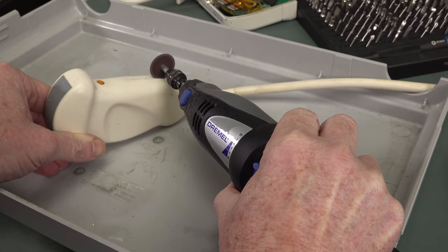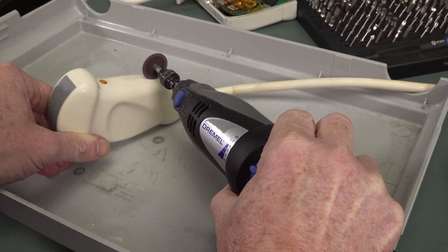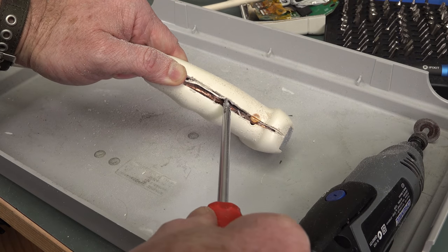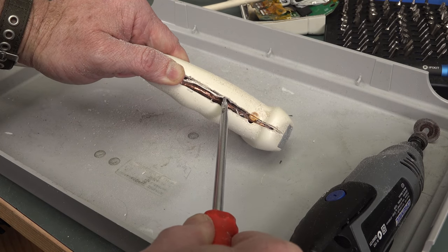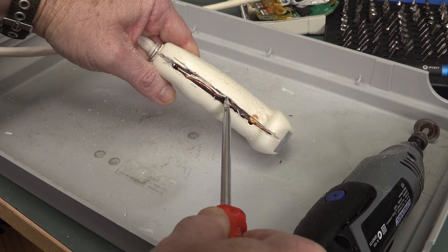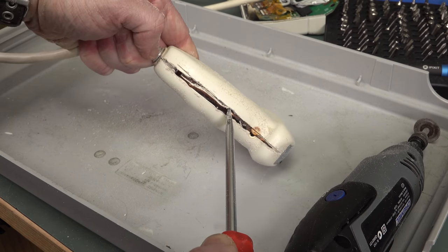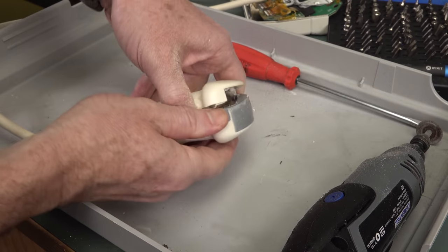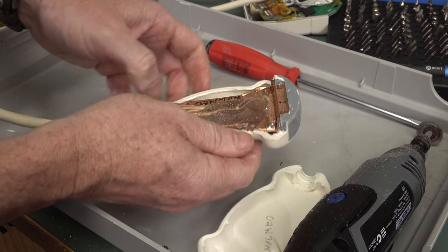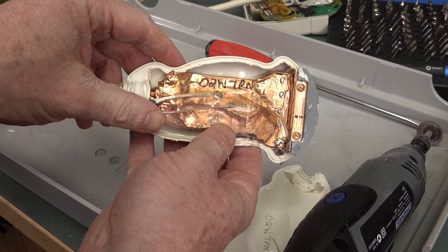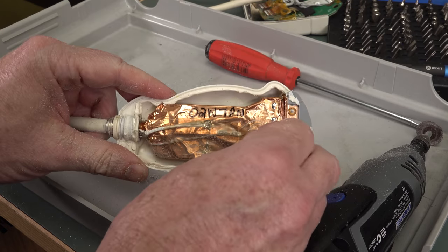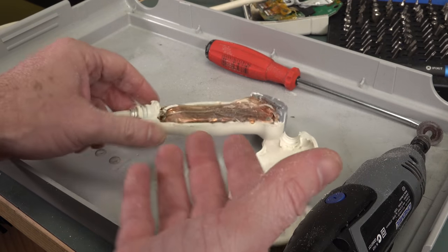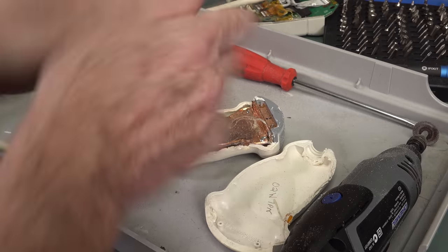This could be a bit messy. Well, the good news is it's not potted. You can see lots of copper shielding tape in there. It doesn't look like a metal case - that was just a metal outer strain relief ring. I can break this apart. There we go. Look at that - handmade jobby, each one of them. That's the thermistor. Sorry, I got my mask on. Let me clean this up.